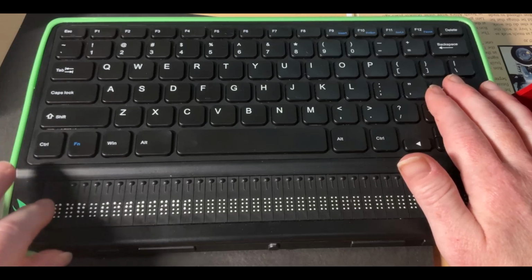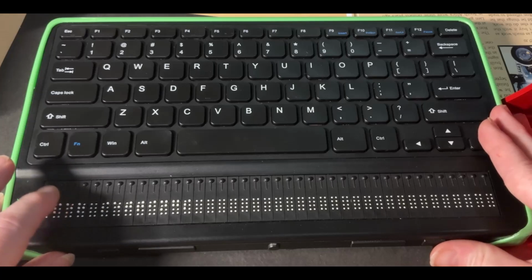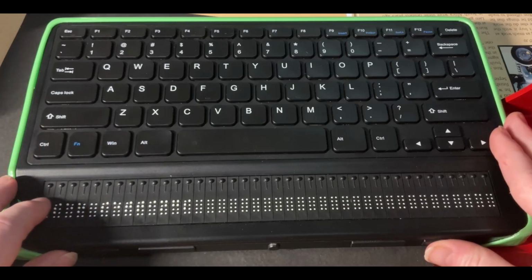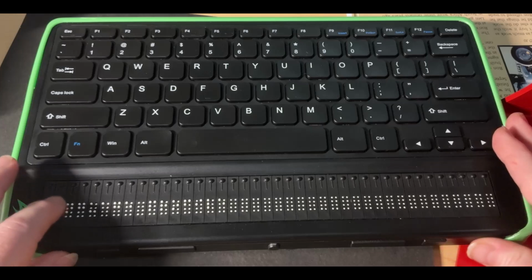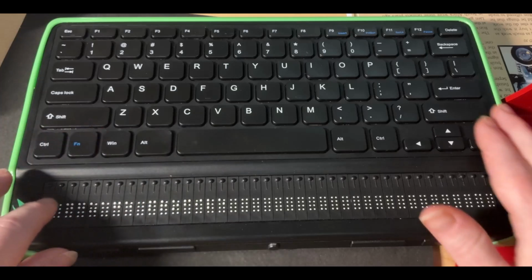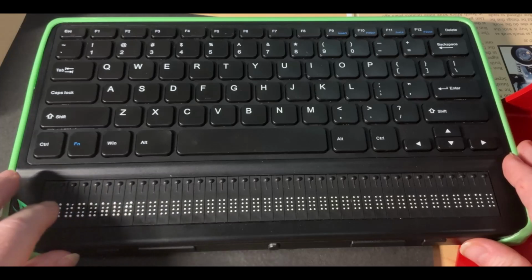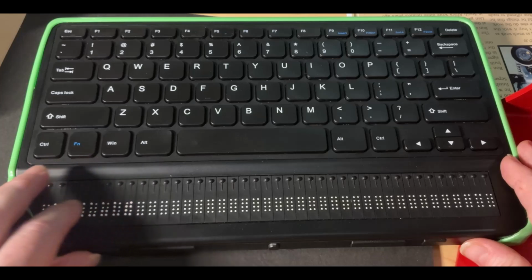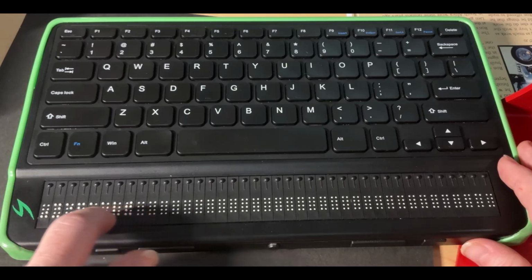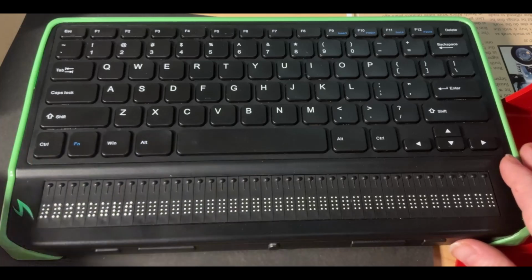And then to confirm entry into the settings menu, you're going to press either an enter key or a cursor routing key. The first option in the settings menu is user settings. We're going to just go past that by one. So the next one is pressing our next thumb key to find our language profiles. And we're going to press enter to open that menu. The first thing I see is the word default, and that's the name of our current language profile that's active. And I know it's active because it has the 7 and 8 dots along the bottom. It's sort of underlined, and that's just a way of letting you know that it's selected.